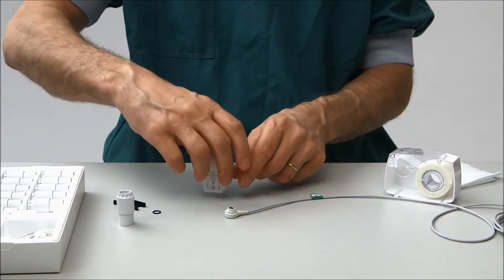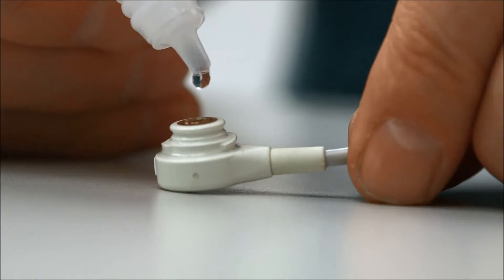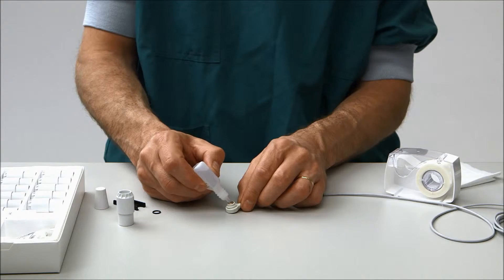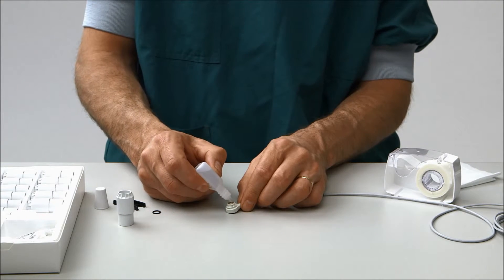Add two large drops of electrolyte solution from the bottle to the surface. Move the tip of the bottle into the solution to get rid of air bubbles.